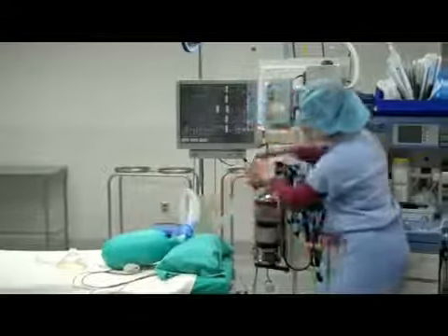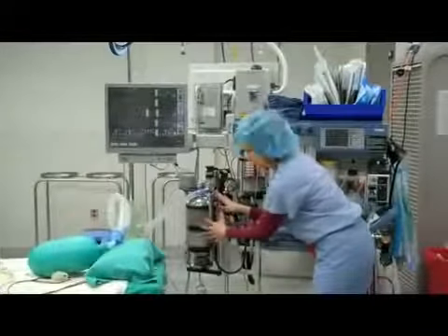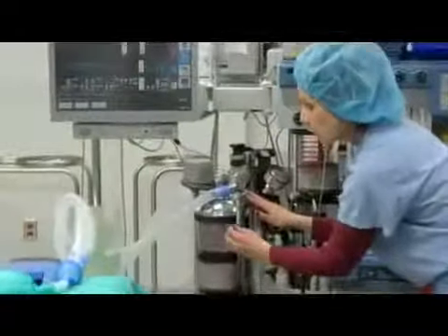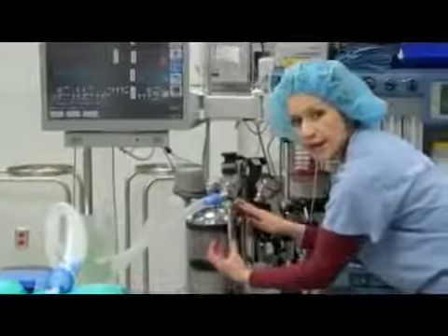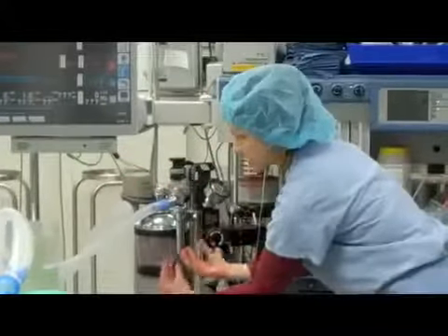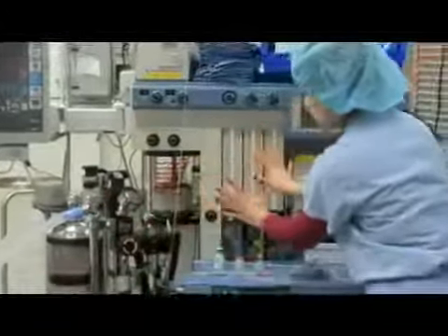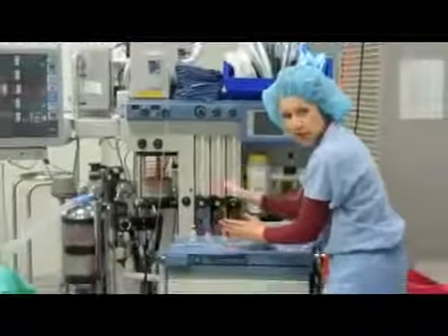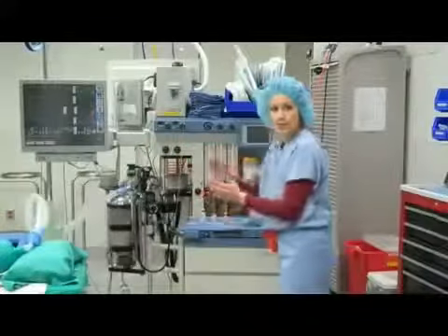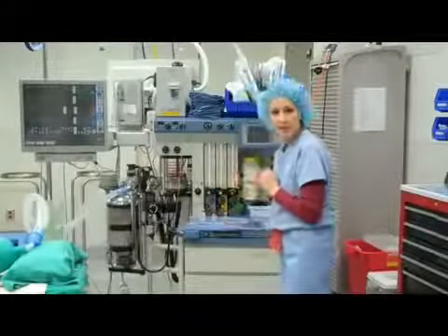And it continues to travel into these canisters with the pellets that you see. These canisters are called carbon dioxide absorbents. What they do is extract the carbon dioxide from the gas that is coming from the patient. The carbon dioxide is removed, and the gas is then brought back into the machine and mixed with fresh gas, and then sent back through. So this system is a closed system. And this is how we manage the patient's general anesthetic.